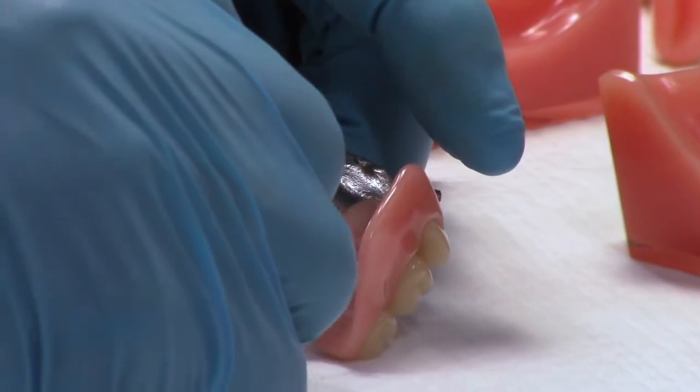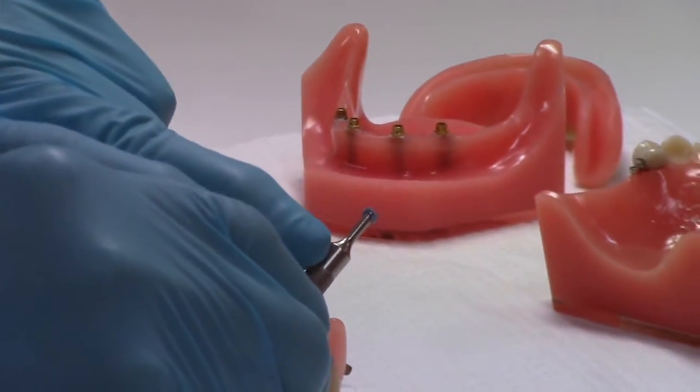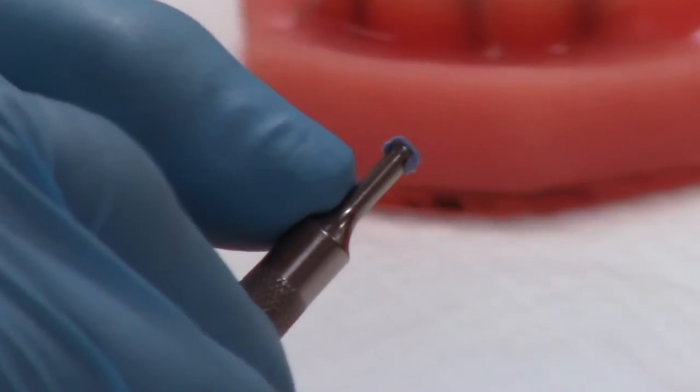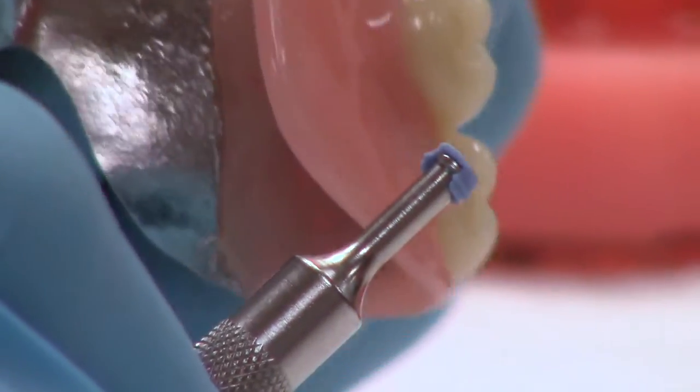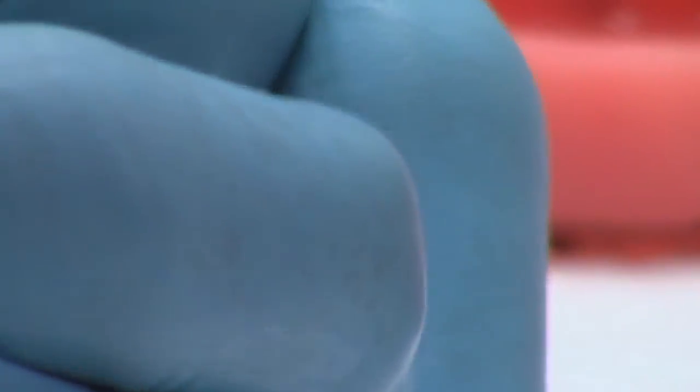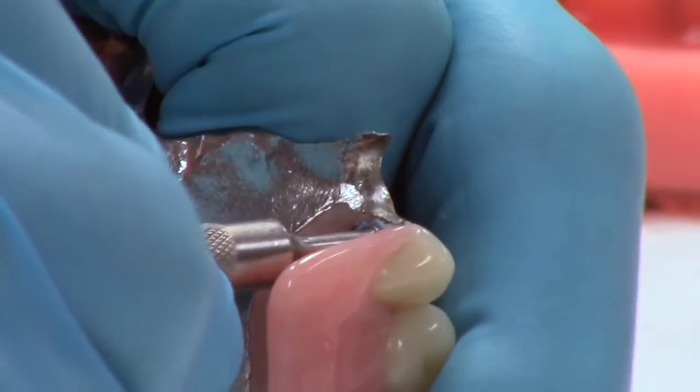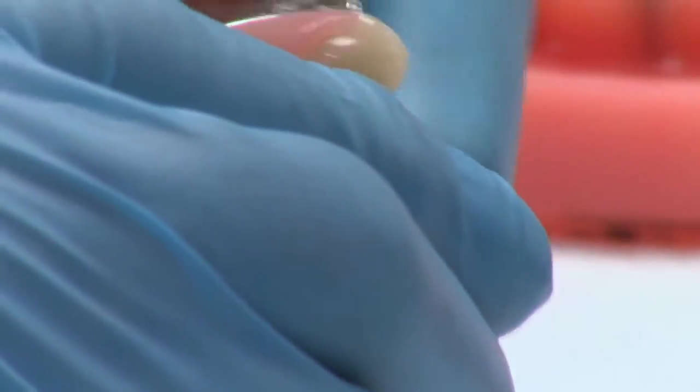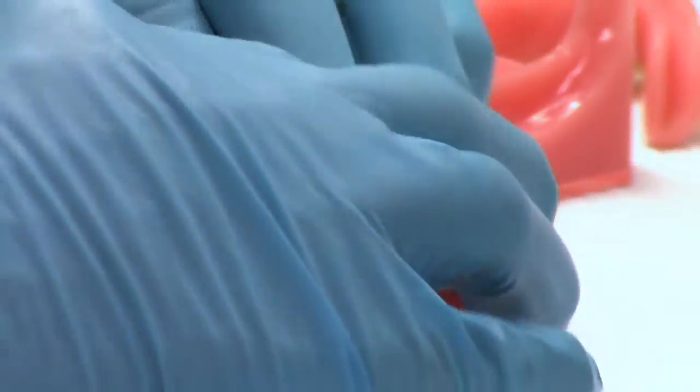Pick up, in this case, the blue male on the end of the seating tool. Can you see that rather wide opening? I have to line that up with the opening in the metal jacket. So I'm going to hold this in my hand, line it up, and push it in. Once again, you might have heard a little bit of a snap there. So we'll reseat that. And there. You can get a little bit of snap as you can see.